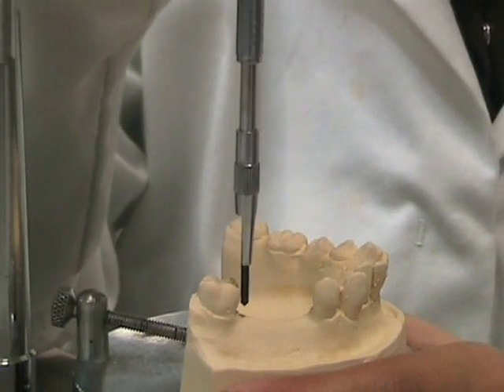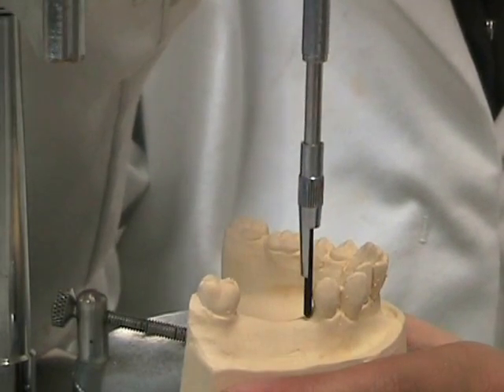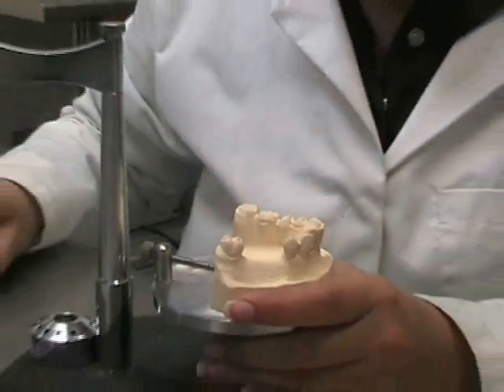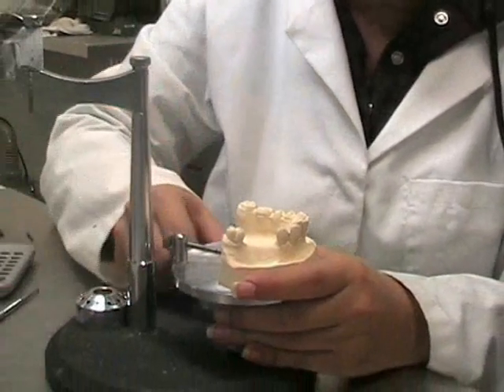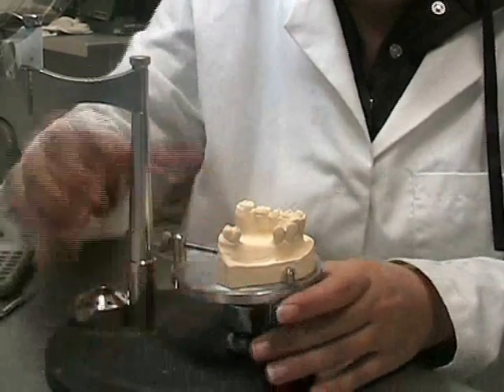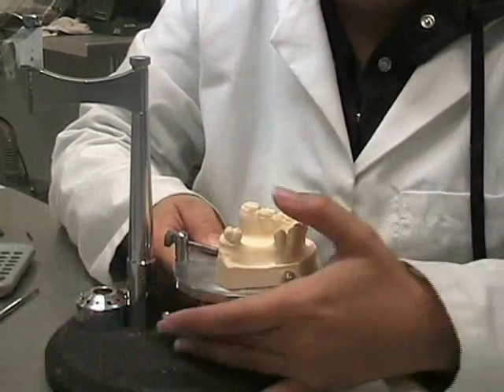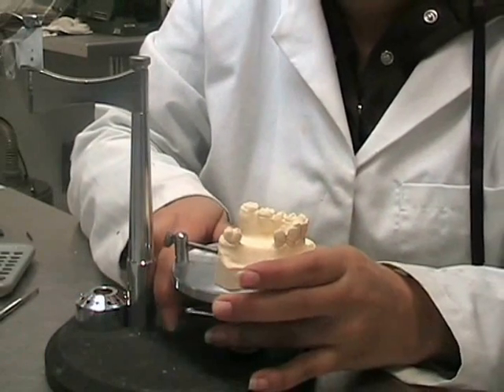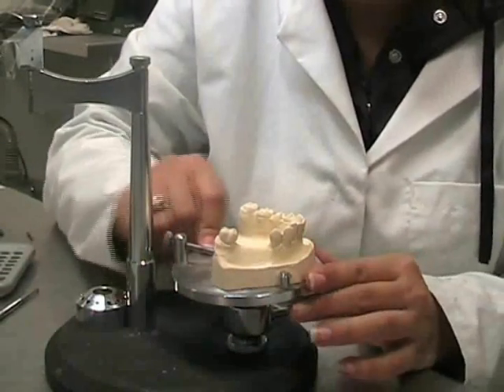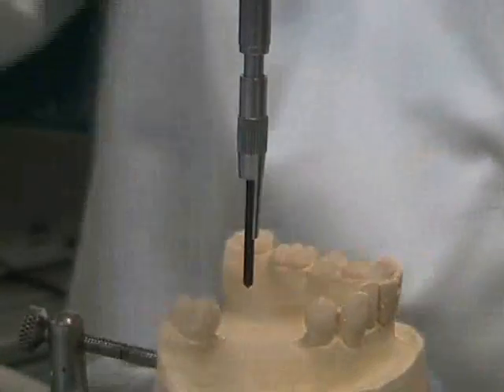Once the two triangles of light have been assessed and an equal measurement is found, we are then able to lock the table in this position. In order to do so, we hold the cast table and move the locking screw in a clockwise direction, ensuring that the table does not move from this orientation. Once in position, the table is now unable to move. We are able to use the analysing rod to check the triangles of light once more.